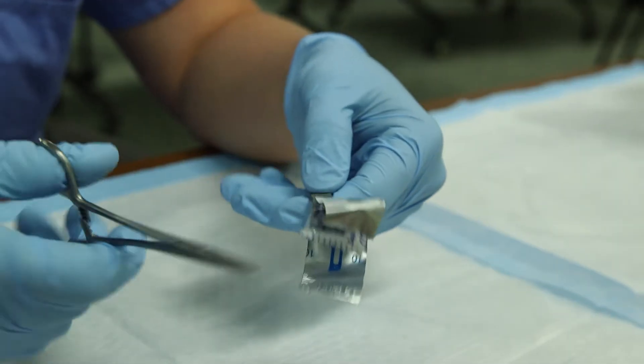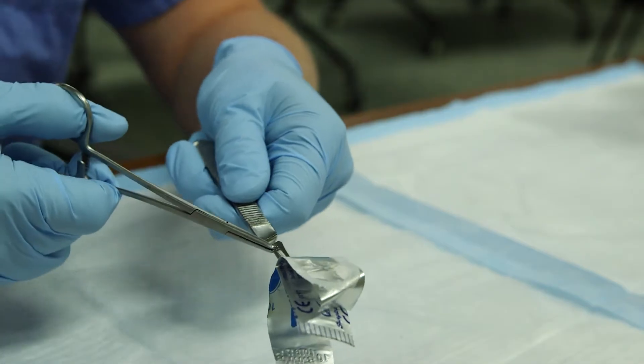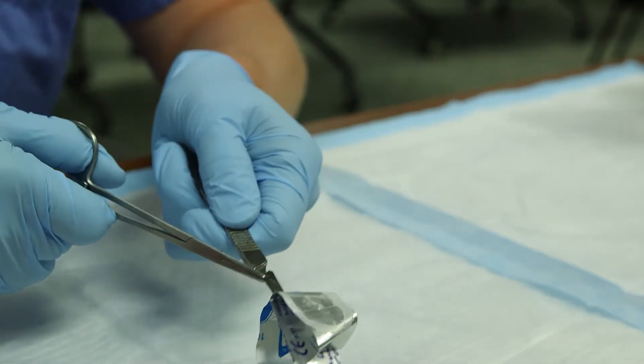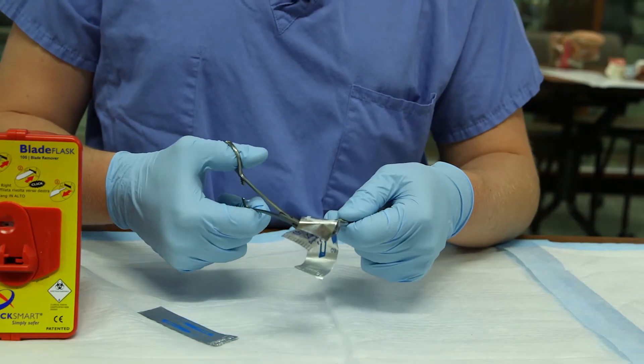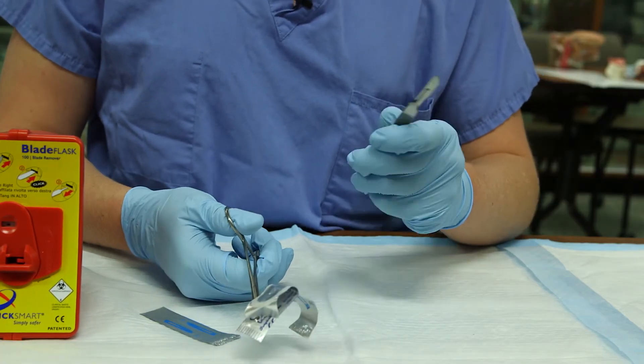After the blade is engaged, take the needle driver and grab the end of the blade. With your hands together, pull the blade back towards yourself. Then take the forceps and remove the package from the blade. You are ready to go.